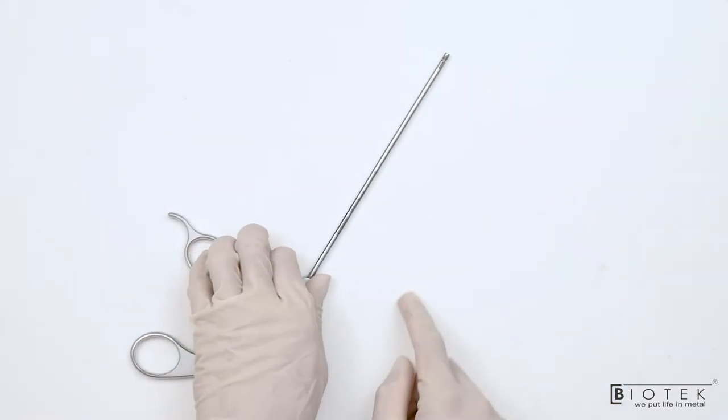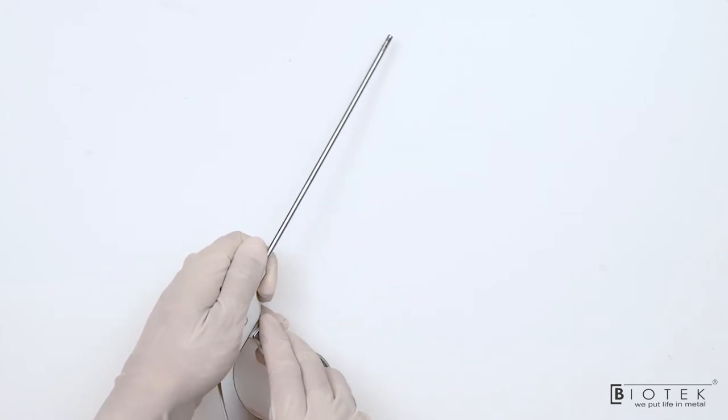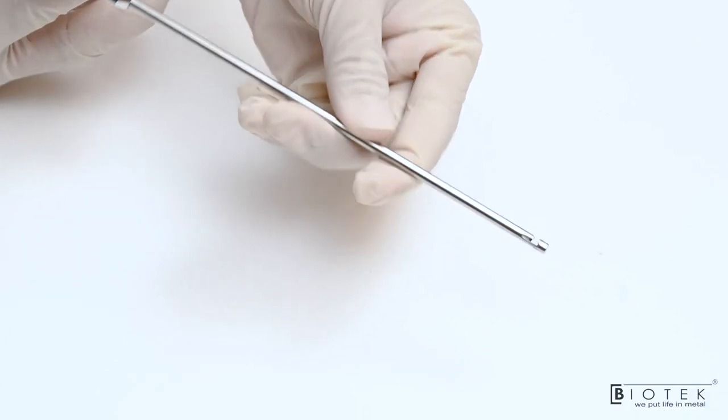This is suture cutter device with a sharp tip. It is open-ended suture cutter.